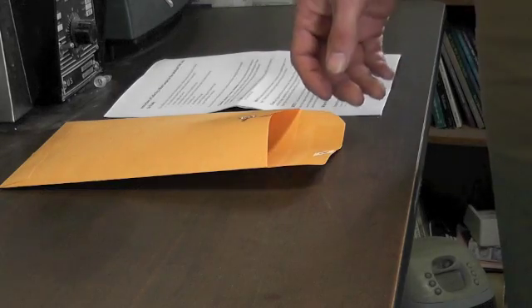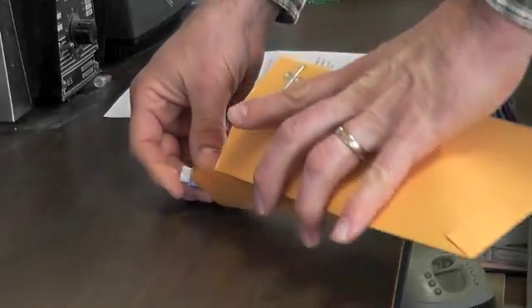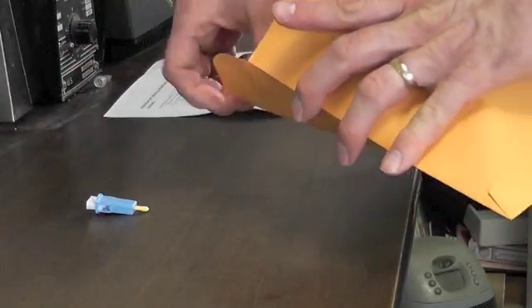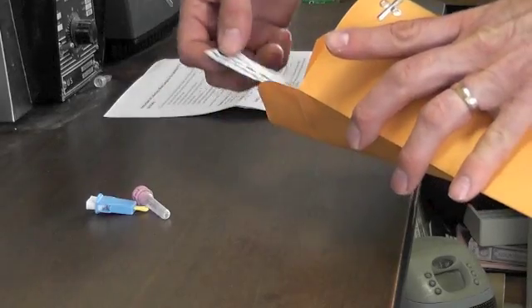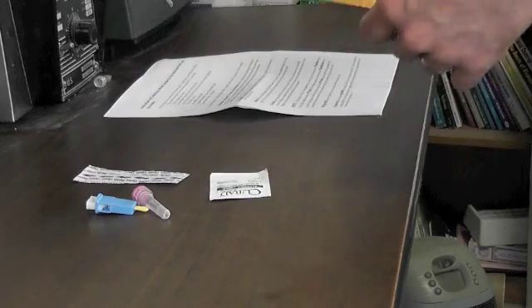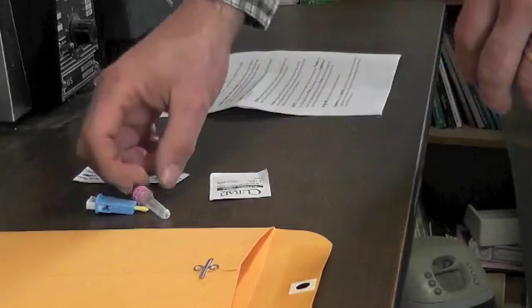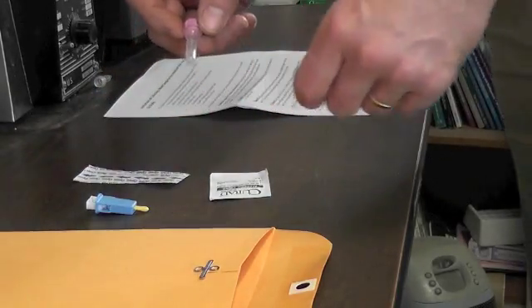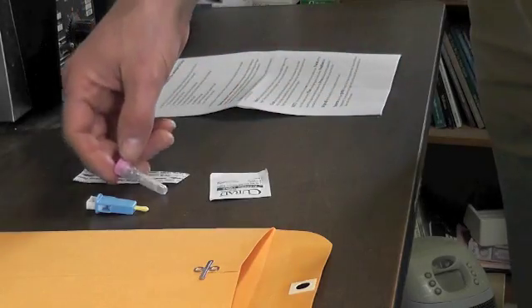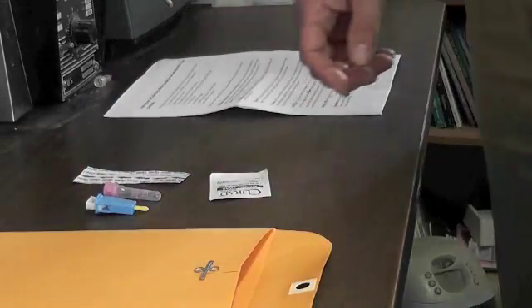You want to be able to mail this on the same day that you take the blood sample. Some of the things you'll find in your kit: a lancet device, a micro tube for collecting blood, a bandaid, an alcohol swab, a plastic bag with an absorbent pad, a tube for holding this for shipping, a label, and an envelope for mailing.